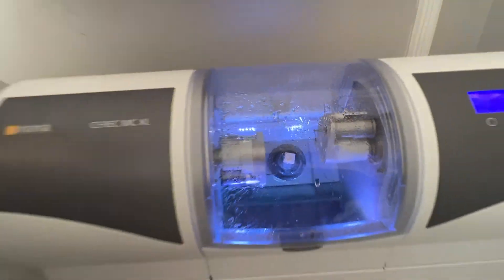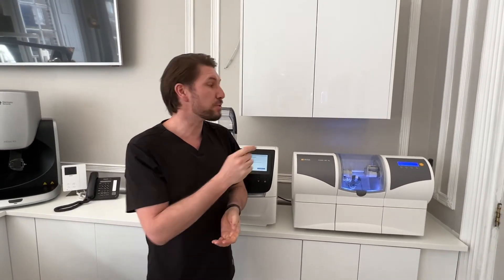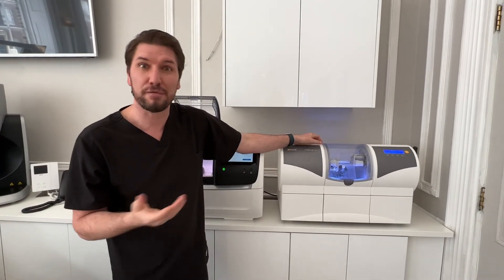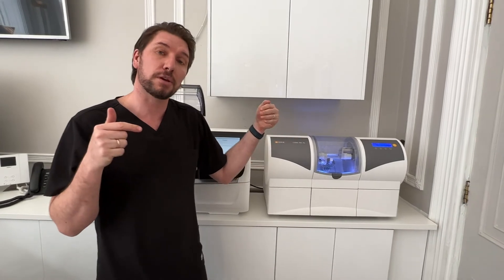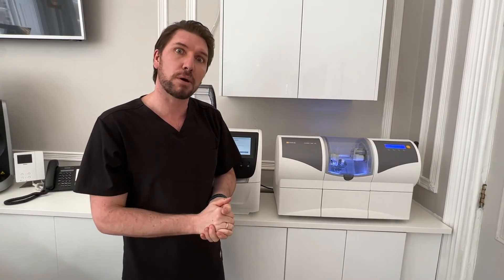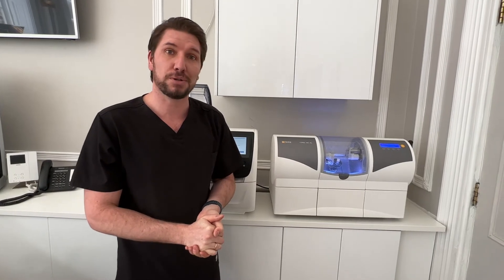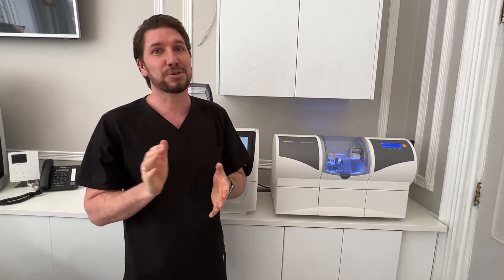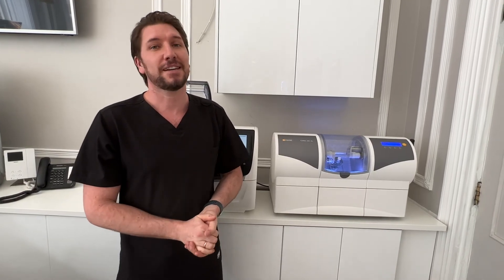So that's it, nice and easy. We're just going to pop that in there in storage. Make sure you do that. I would personally say that every time you turn the machine on every day, you want to just check the pump, make sure that the burrs are receiving the coolant properly before you start your milling so you don't encounter errors and don't go through your burrs quickly. Nice quick and easy one for you today, so enjoy and make sure you keep those mills in great condition.